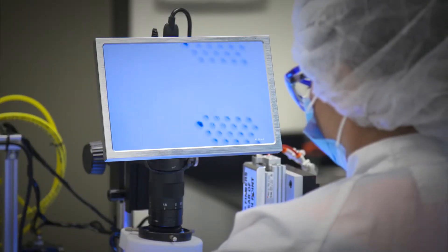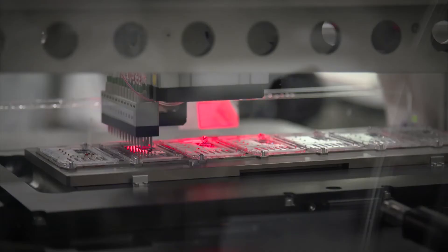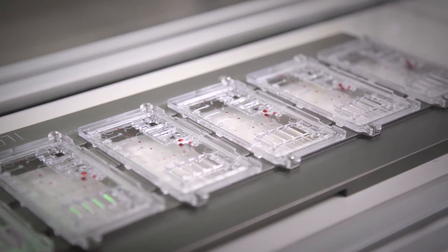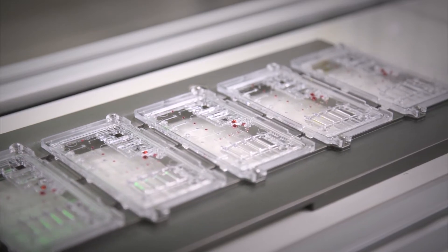Electrical signals measured on these specific electrodes during the detection phase of the assay protocol, combined with advanced software logic, is what produces a final call for each target in the multiplex panel.